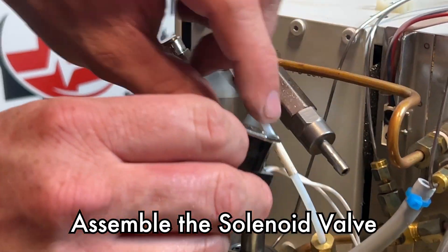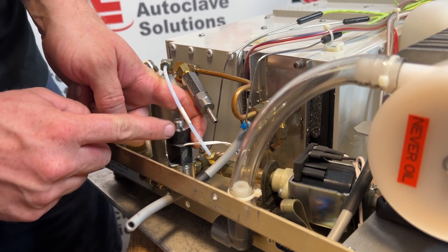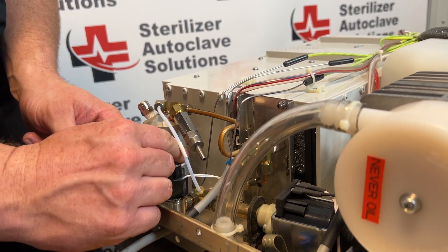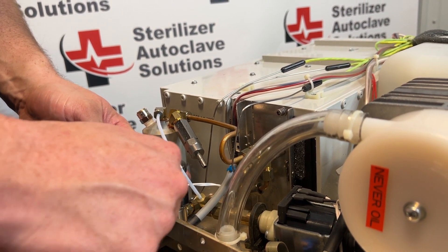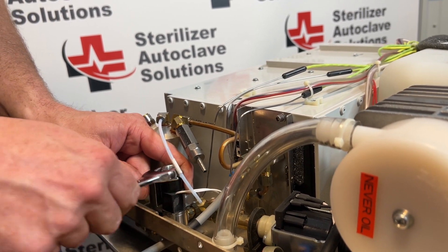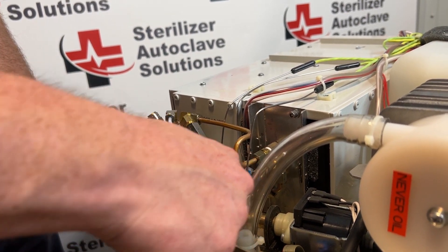Taking the clamp, put it back over with the wire facing up. With the wires up and the bracket with the opening at the top, tighten down this nut using the 11/16ths. If you used locking pliers it might have affected a couple of threads but it will still tighten on. Snug this down — generally you want it facing the same direction it was, towards the compressor. This does not need to be torqued on super tight.